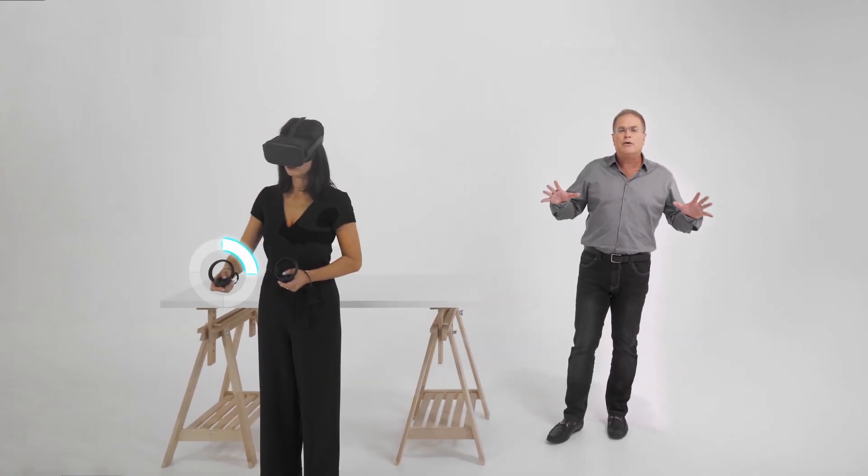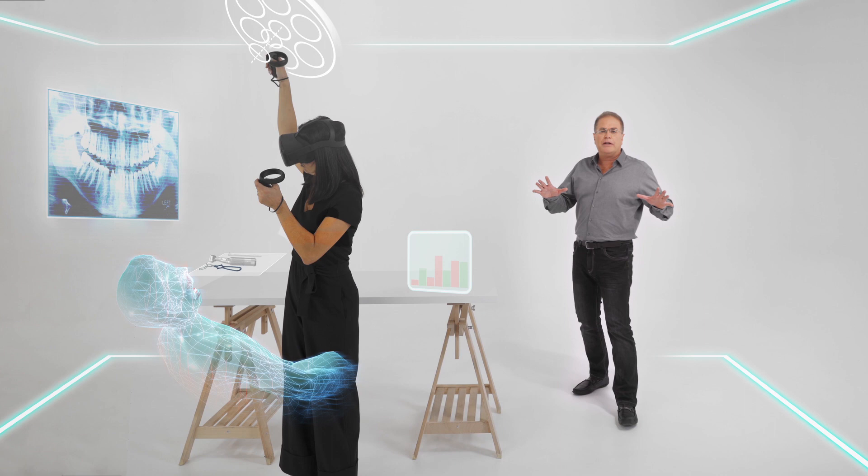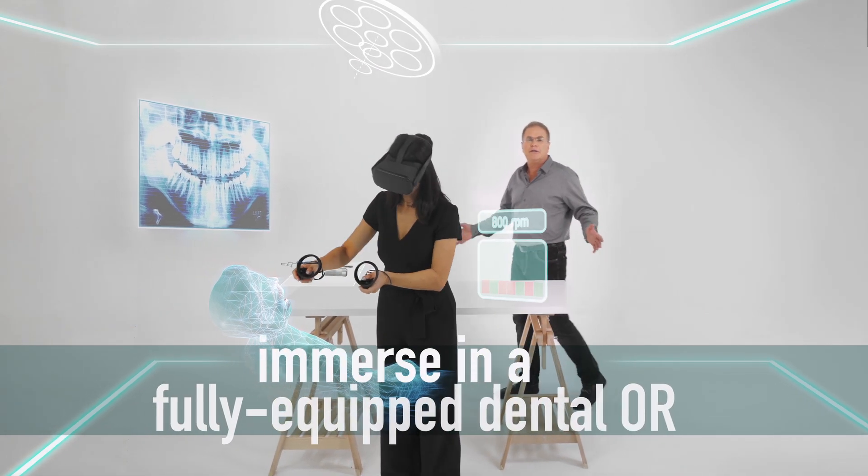Immerse in a fully equipped dental OR. Work under the flawless guidance of acknowledged dentists and clinical teachers.